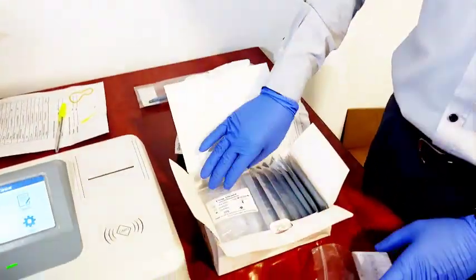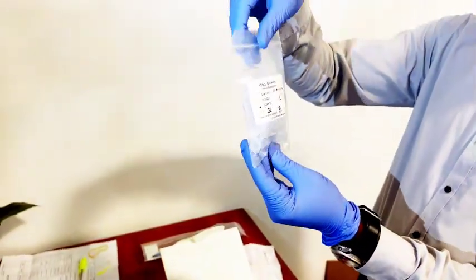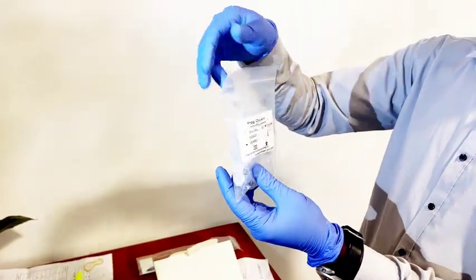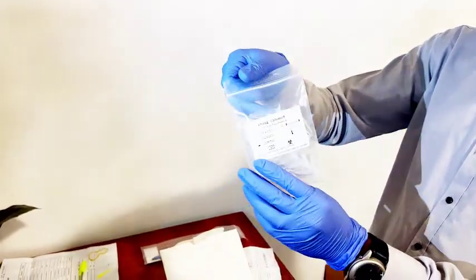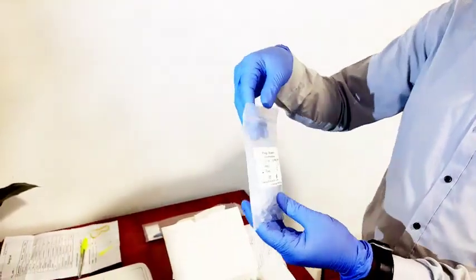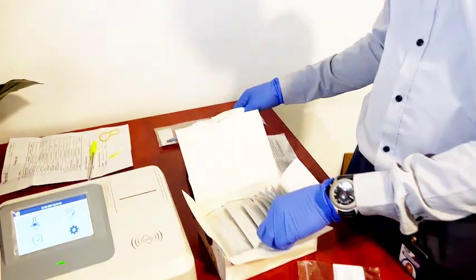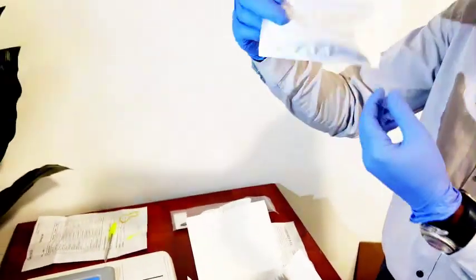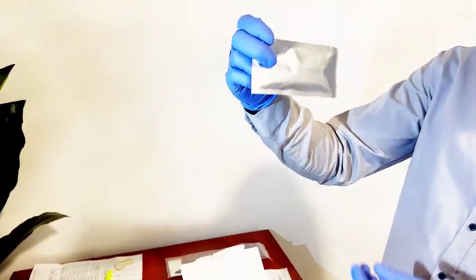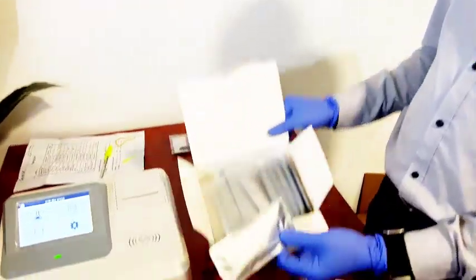This is the reagent itself, with 25 pieces inside. This is the test cassette, also with 25 pieces inside the pack.